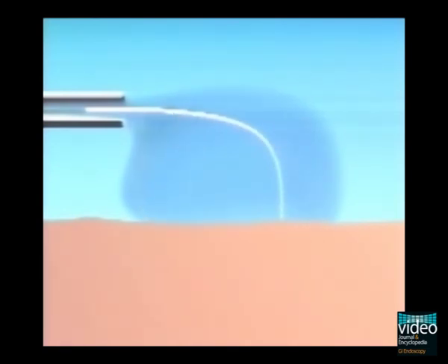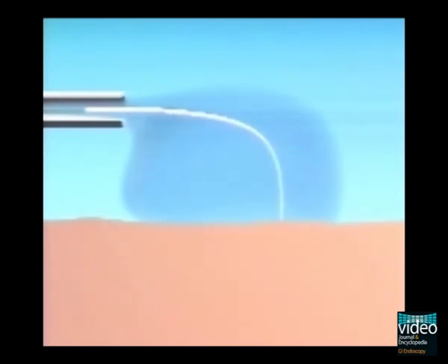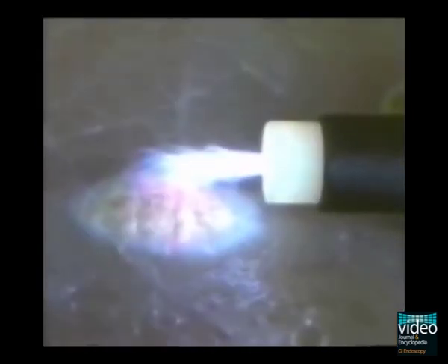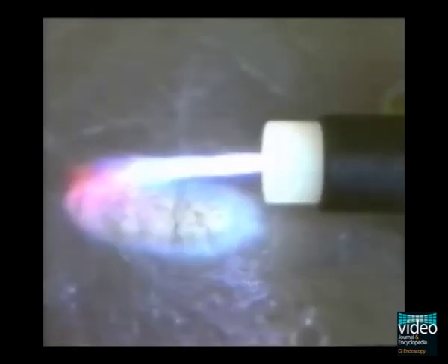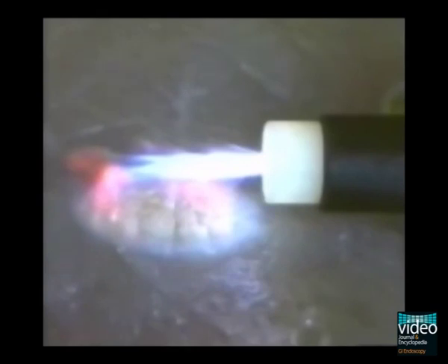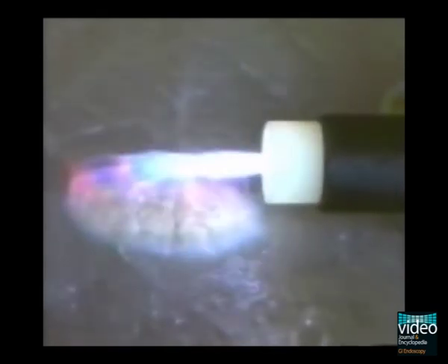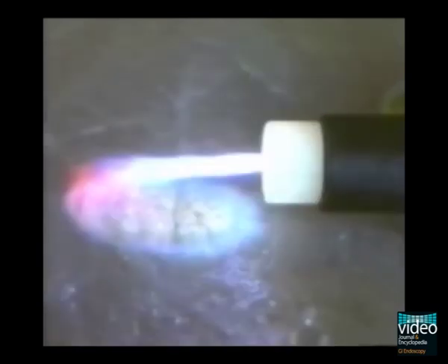This allows the current to flow to the tissue without contact. The thermal effect causes a dehydration of the tissue that is decreasing its conductivity. The flow lines diverge automatically to hemorrhagic, electrically more conductive areas. This creates a self-limiting uniform penetration depth.